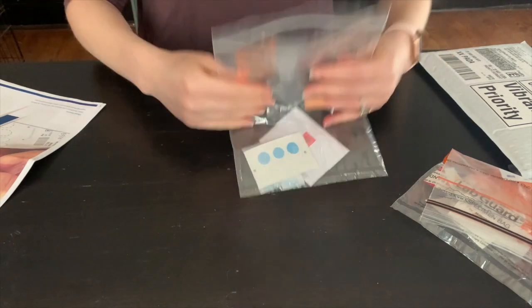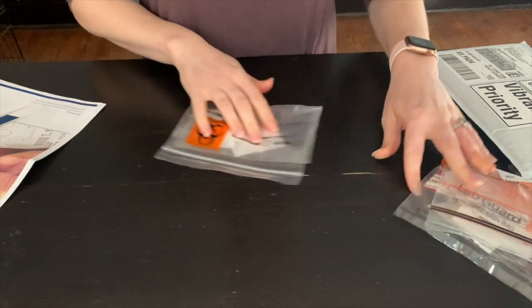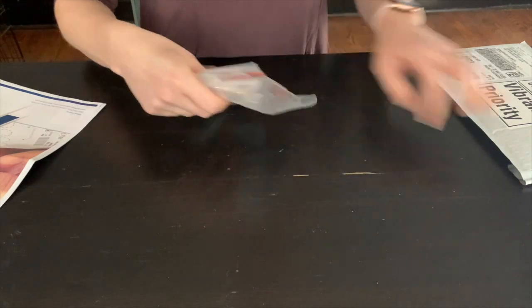Place both biohazard bags in the bubble mailer. Wash your hands, drop off your sample the same day as collection before the last pickup.